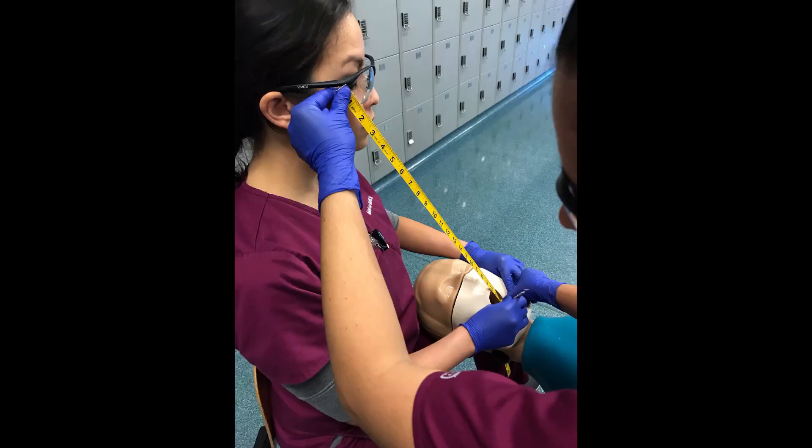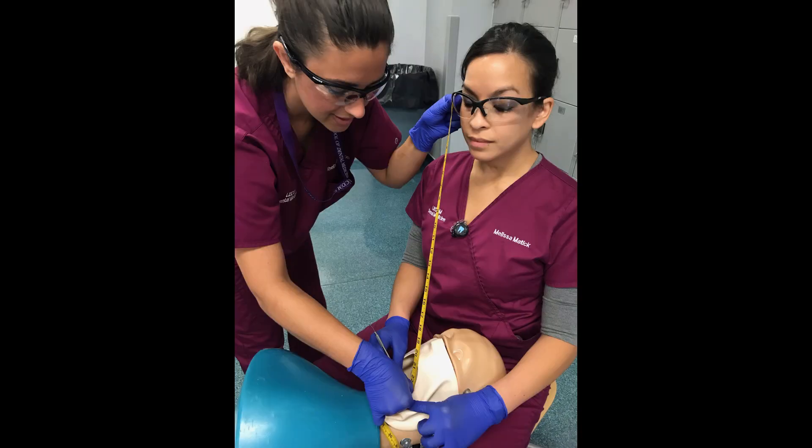For your safety, the ruler edges are protected and will be disinfected before and after each use. There will be minimal touching of subjects by the investigators, limited to the arm and head area. We anticipate up to five minutes of time to gather the information.